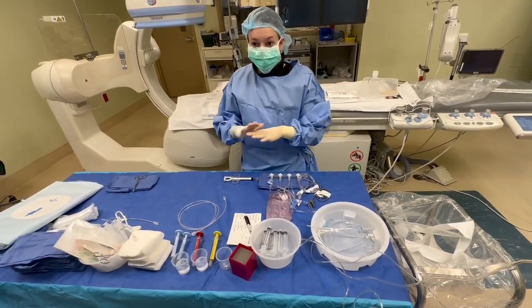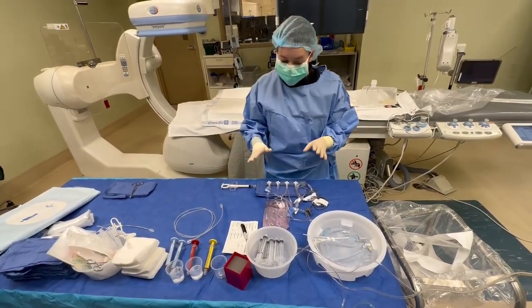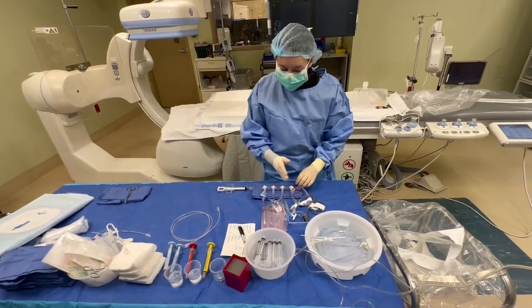So now I'm going to get ready to flush my manifold. Everybody does this differently, but you'll do whatever your preceptor says. I like to start from left to right.